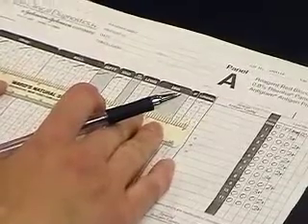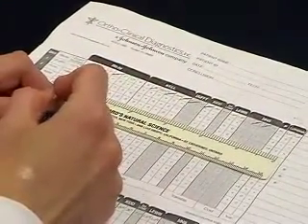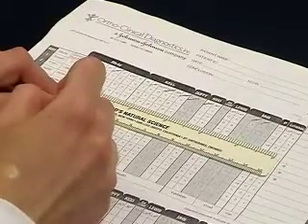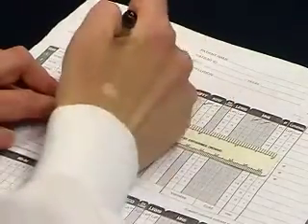And we move down to the next negative cell. We start from the left again and look for where antigens are present. D we have already excluded. We look over at big E. It is homozygous because little e is not present, so we can exclude big E. Little c is also homozygous.